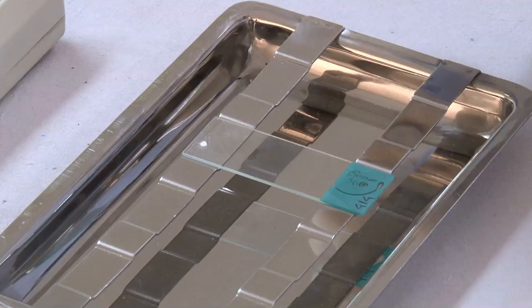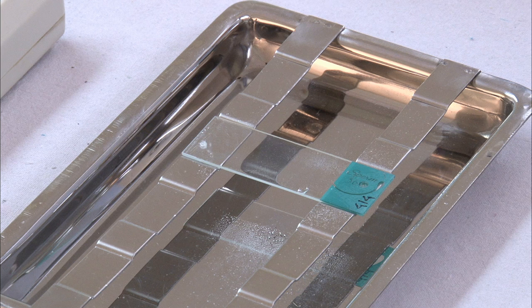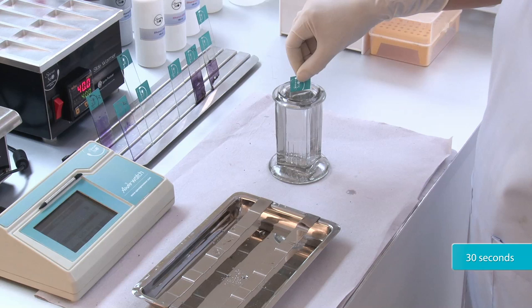Keep the slide horizontally on a staining tray. Cover the smear with 70% ethanol and keep it for 30 seconds. Cover the smear with 50% ethanol and keep it for 30 seconds. Dip the slide in distilled water and keep it for 30 seconds.